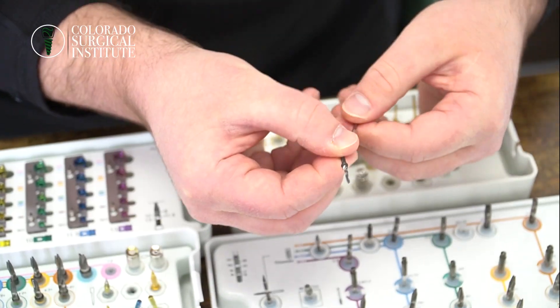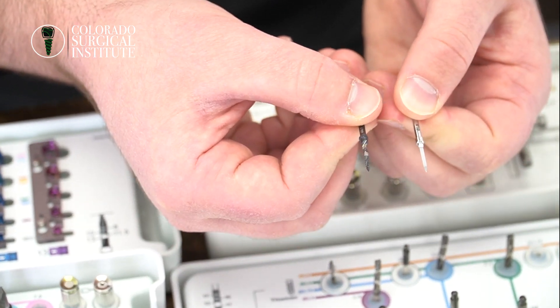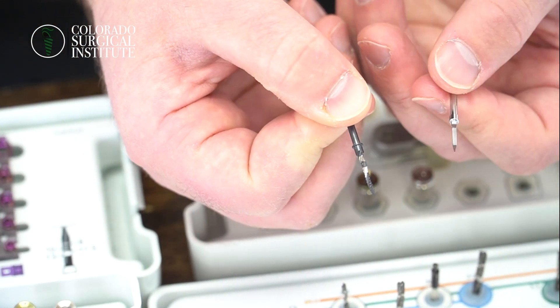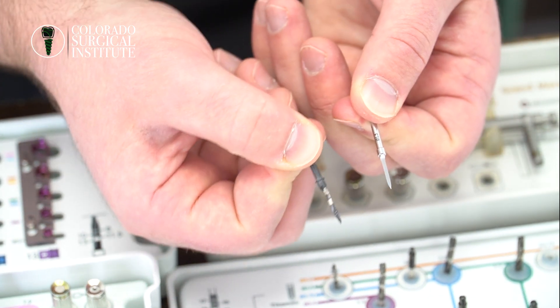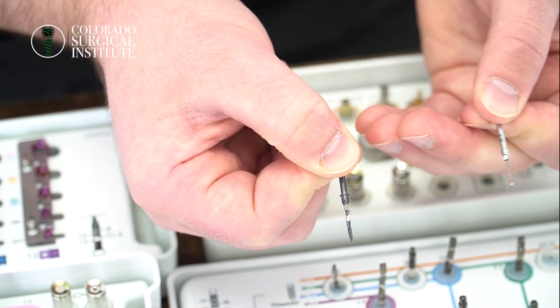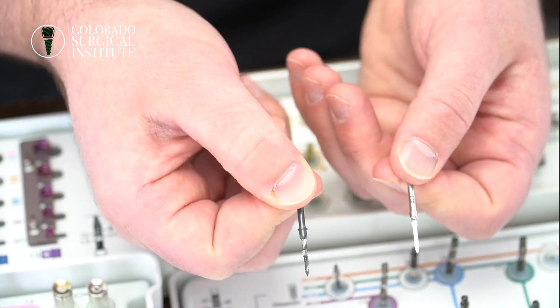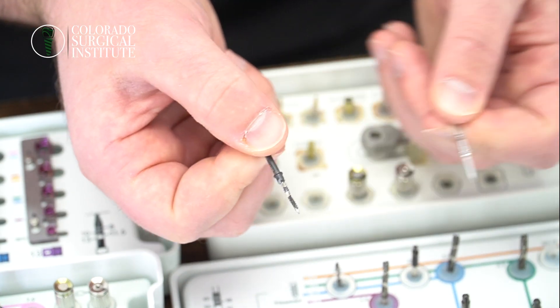When you're looking at these two precision burrs, this silver-looking 1.5 millimeter one I actually get from Blue Sky Bio — and if you're at DSN you get 10% off. The Lindemann burr has serrations on the side of it that are side-cutting. The reason I use it is if you need to change your osteotomy angulation or direction, it's way easier to take a side-cutting burr and move your osteotomy while it's inside the osteotomy than to use a burr without side-cutting. For your first 100 implants, I think it's very important to use burrs like this that make your life a little bit easier. Later down the road, when you start placing 200, 300, 400 implants, you're going to stop using this burr altogether for the most part.